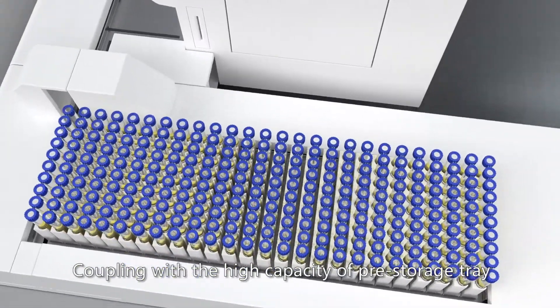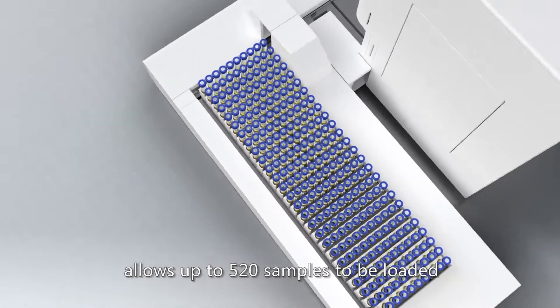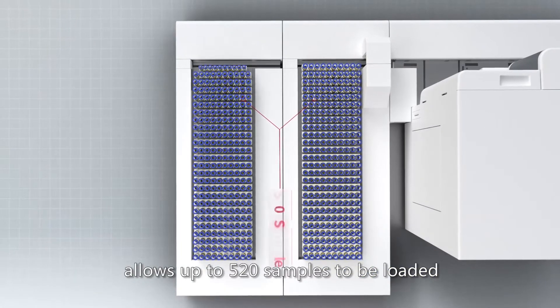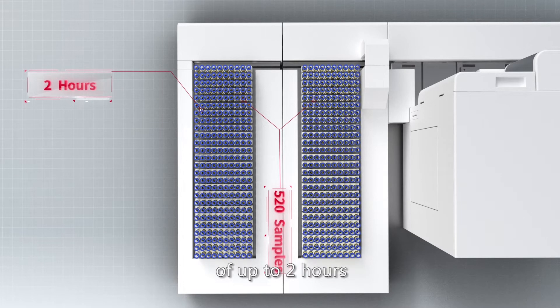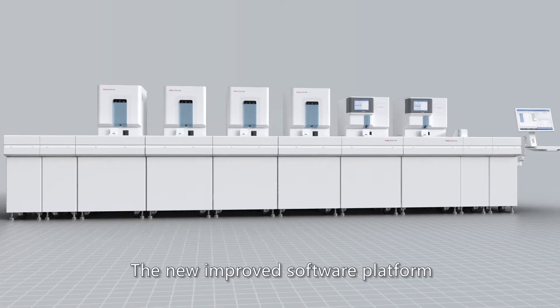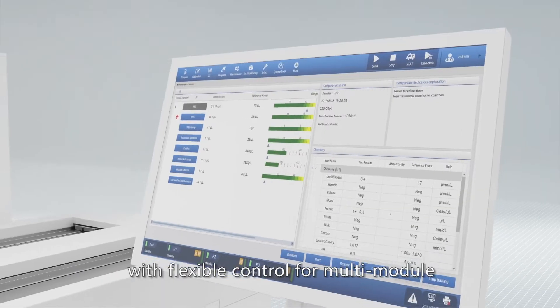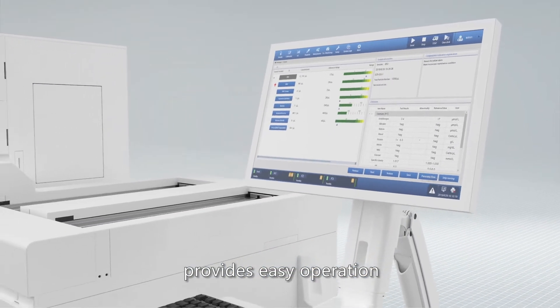The high capacity pre-storage tray allows up to 520 samples to be loaded at a time and a maximum walk-away time of up to 2 hours. The new improved software platform with flexible control for multi-module provides easy operation.